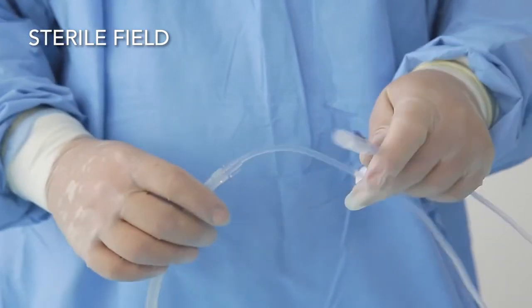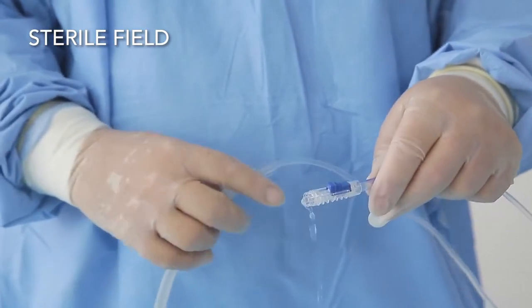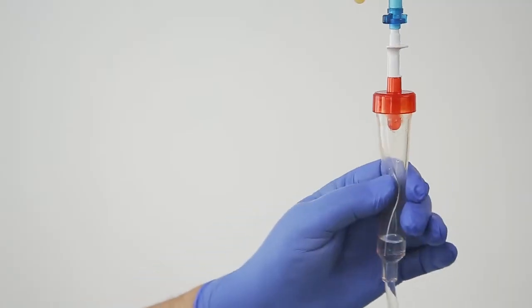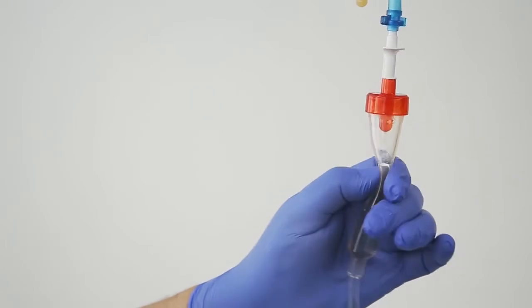After a short while, water should flow out of the inflow switch. Water flow should also be visible in the giving set chamber which should be made three quarters full.